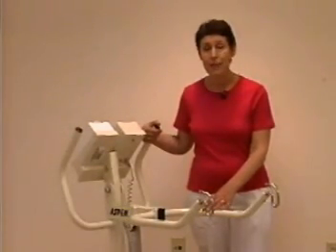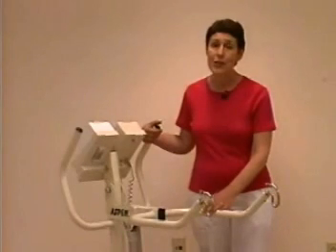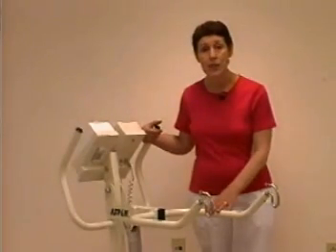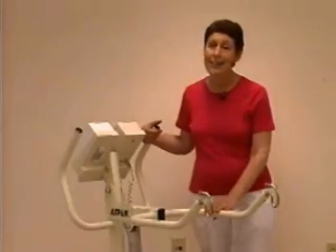Our facility purchased this lift really with one patient in mind. He was 99 years old, and the thing that he wanted to do the most in life was use the toilet. The Hoyer lift was not possible to use to put him on the toilet. It was difficult for our staff to lift him, and he was really too weak to walk. This lift has helped him gain some independence because we can very easily and quickly move him from his wheelchair to the toilet, and he really loves this lift, so do we.